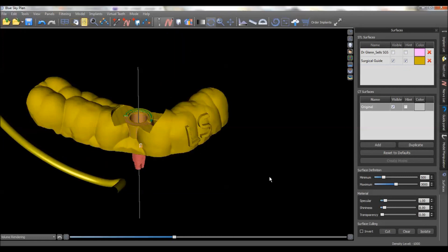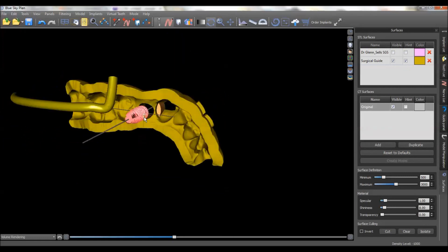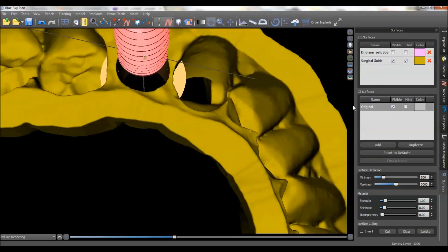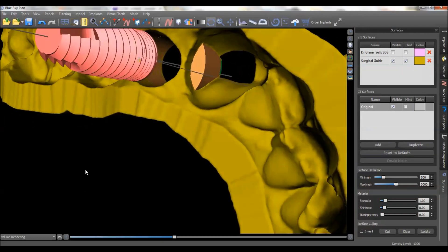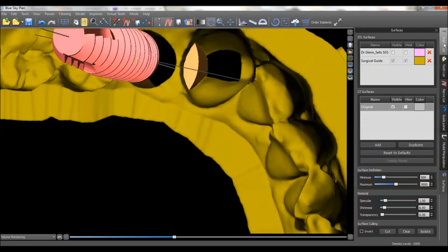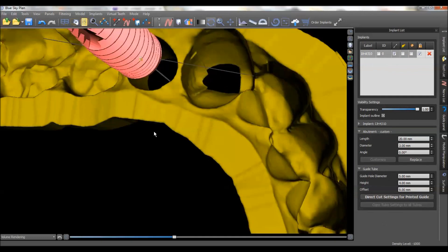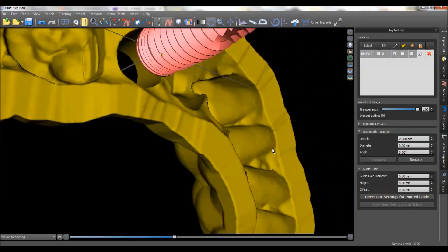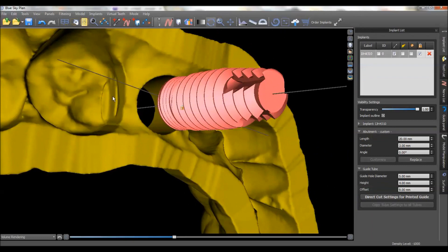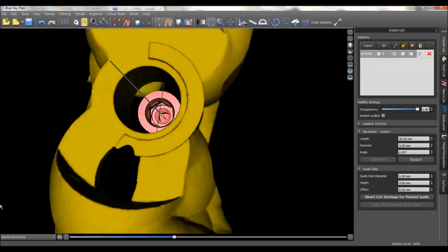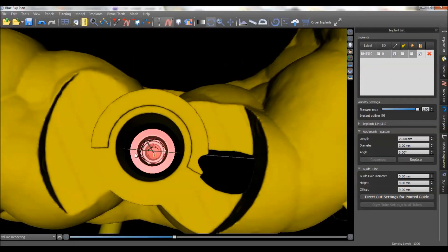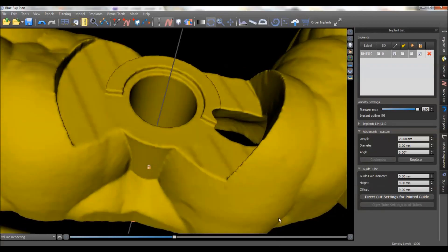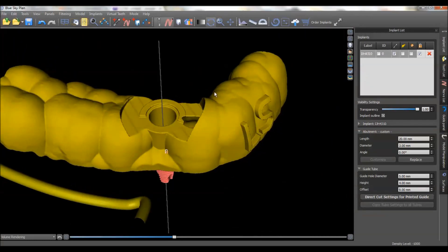Now let's go back to Surfaces and turn off this model. Remember what I told you about the guide tube needing to be adjusted. Come up here into the implant list and turn this off. You can see you'll have a slight bit of adjusting to do right there, but the guide tube — the guide itself — is still going to be perfectly intact on the interior here where you can slide your metal guide tube in. So this is looking good — it's time to export.